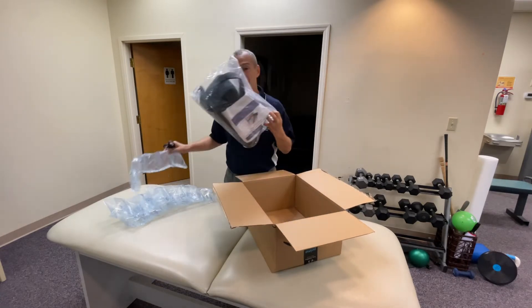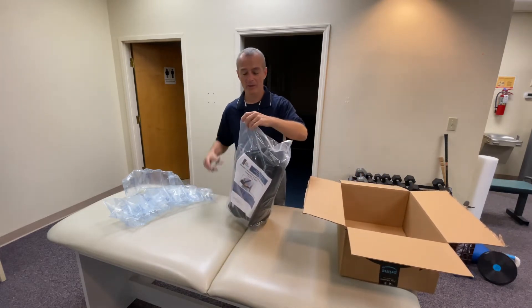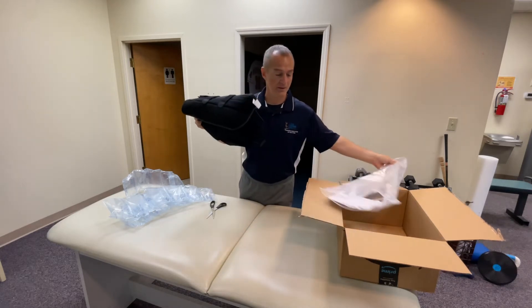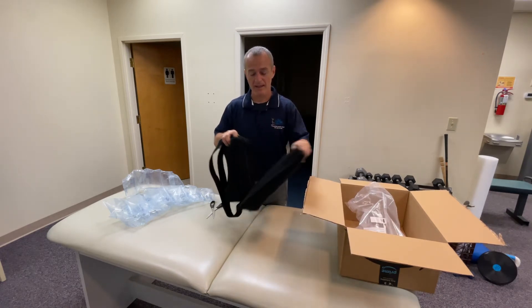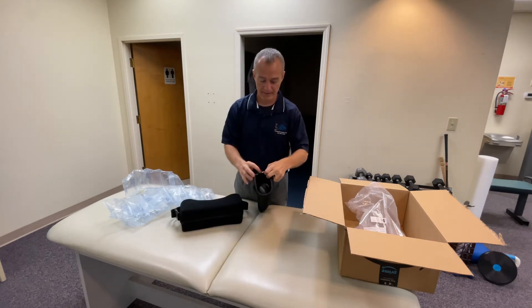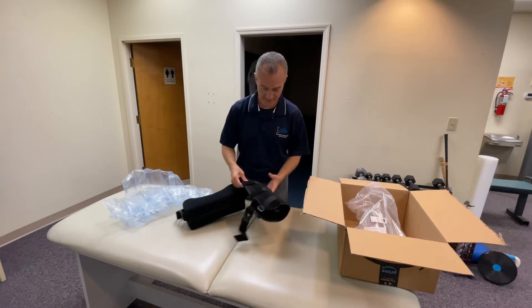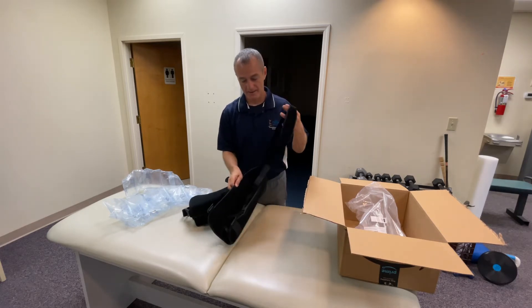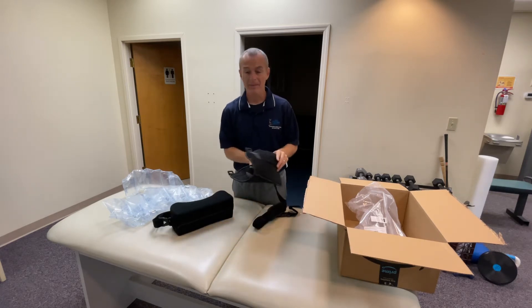So here is the sling that we purchased. I'm going to go ahead and open it. There's actually a zipper across the top. Let's talk about the different components real quick. I'm going to use the velcro to separate it. It comes with the straps that are required. Here is the shoulder strap and I'm going to show you some alternatives on how to use the shoulder strap that might be a little more comfortable.